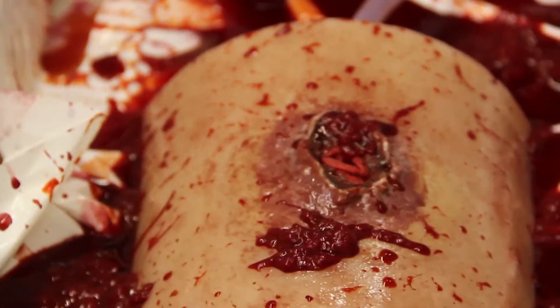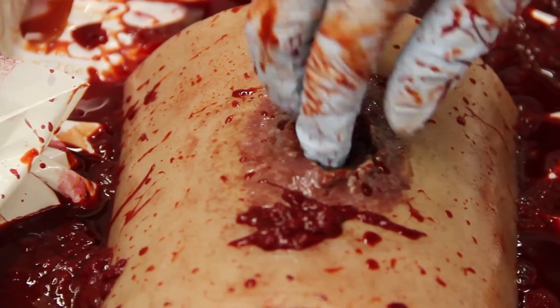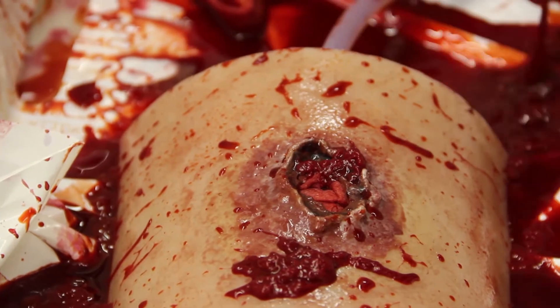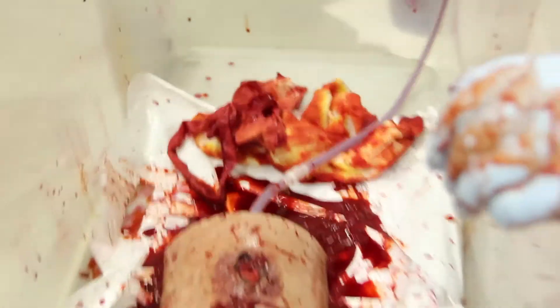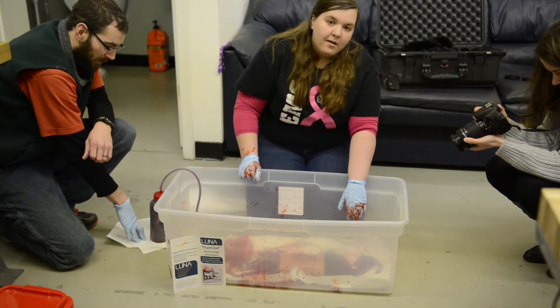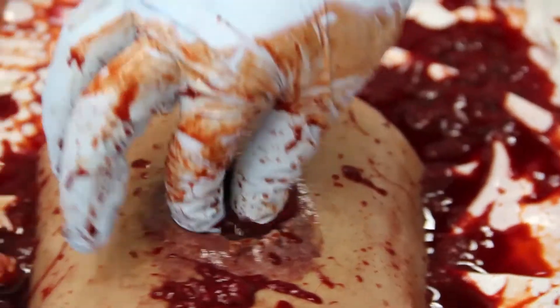This entire system is a training aid. It's not like you're going to see a gunshot wound on the corner every day, so to have this — to have EMTs that can actually use this — and I can use it again and again, this isn't a one-time use. The blood we use is actually one of the only blood simulators that actually clots and coagulates like real blood does. A lot of blood simulators are like Kool-Aid — really runny and it doesn't clot like this.